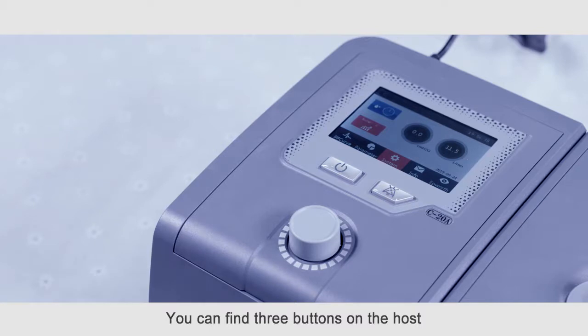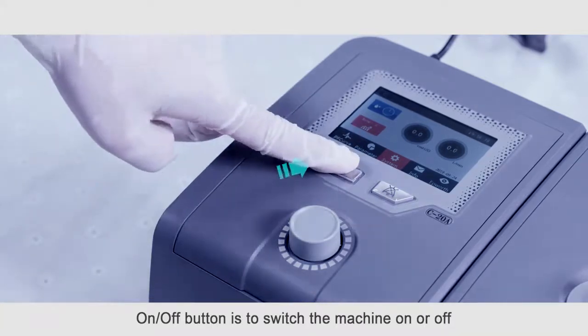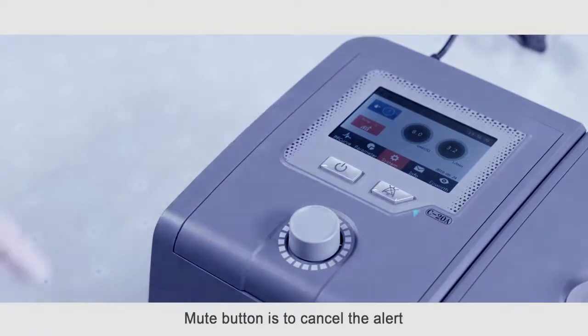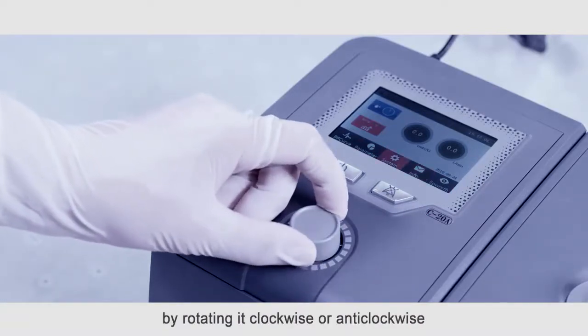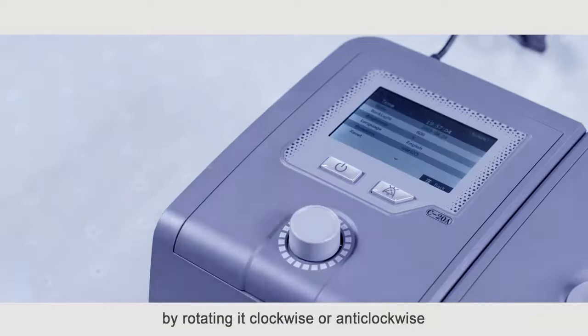You can find 3 buttons on the host. The on/off button is to switch the machine on or off. The mute button is to cancel the alert. The dial button is to adjust the parameters by rotating it clockwise or anti-clockwise, and to confirm a selection by pressing.